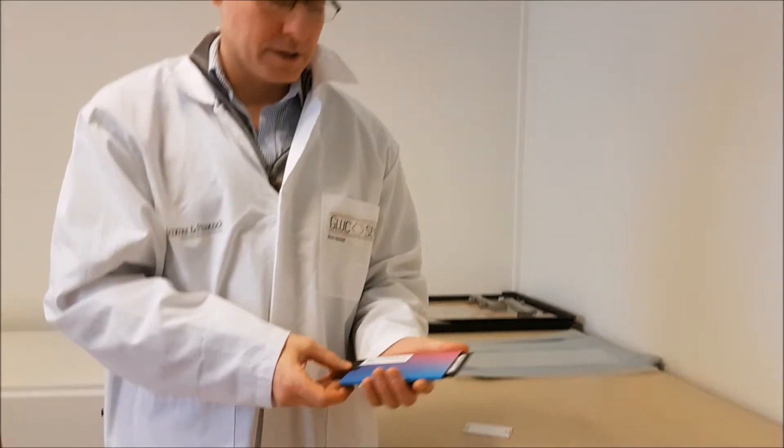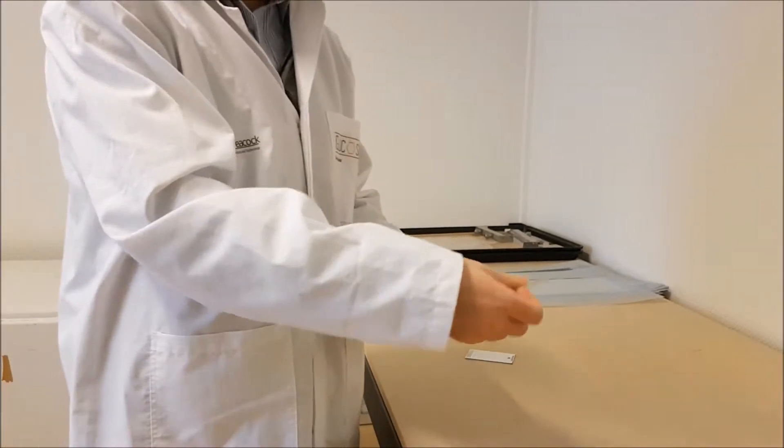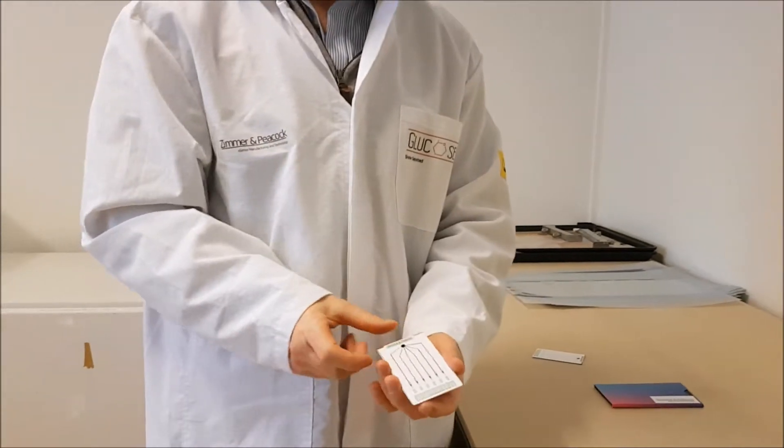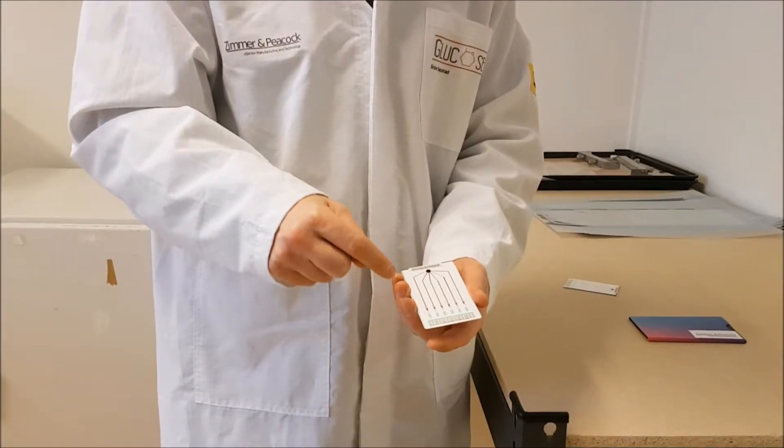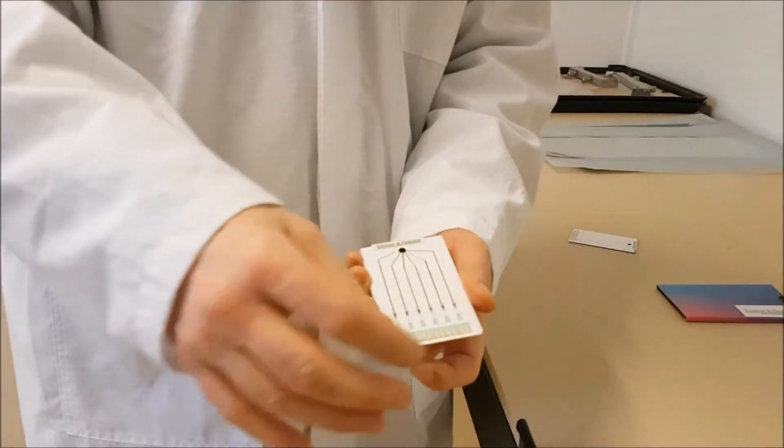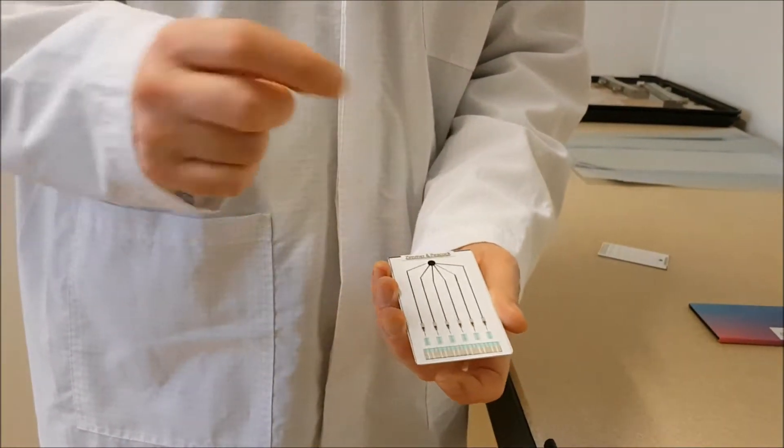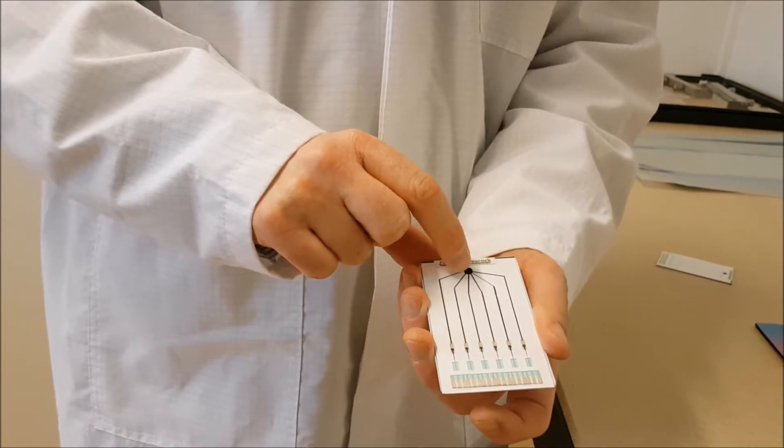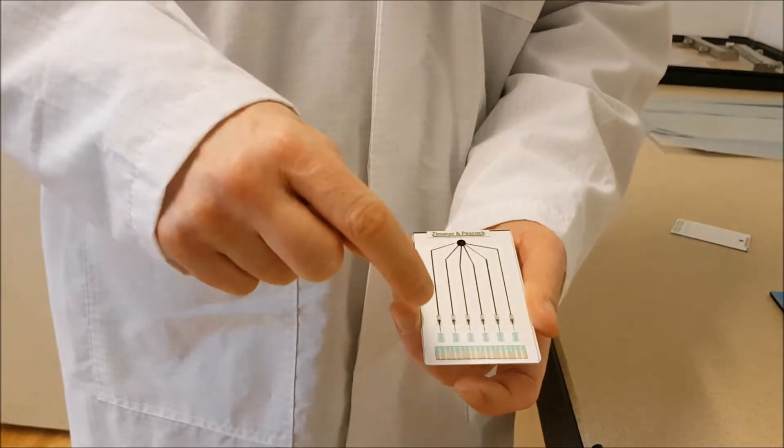So what I have here is a medical diagnostic biosensor platform. In here we have parallel electrodes, so we can make electrical contact at the back. We have a single spot for the sample and then we have microfluidic channels.